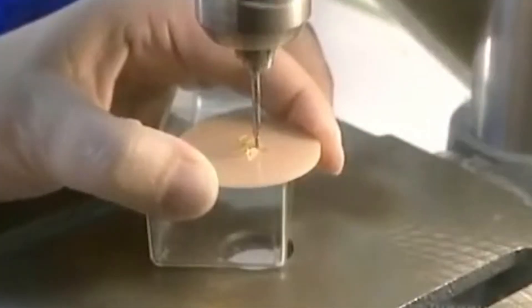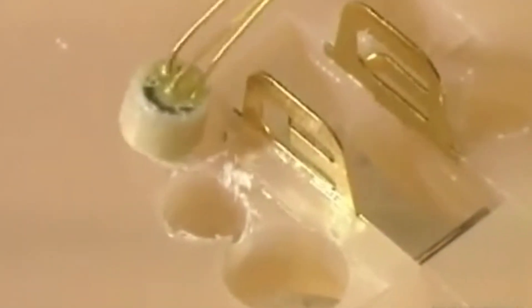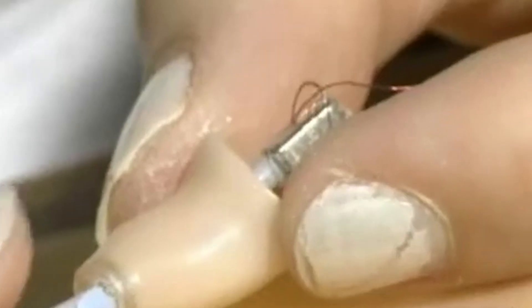Working from the parts card or bill of materials determined at the outset of production, a technician assembles the electronic hardware on the faceplate where holes have been drilled for mounting the microphone, amplifier, battery compartment, and volume control, all hand-wired with colors for traceability. The wires are soldered into place. After this, the receiver is mounted into the shell and a preliminary hearing check is made on the instrument.